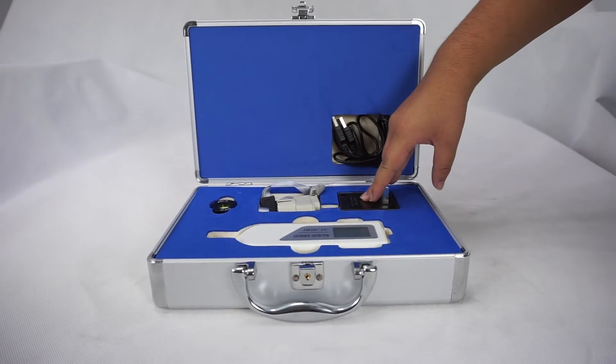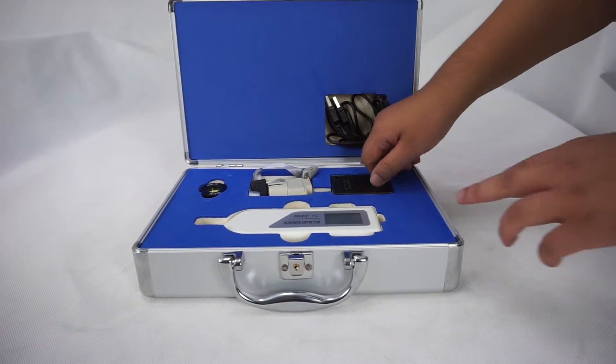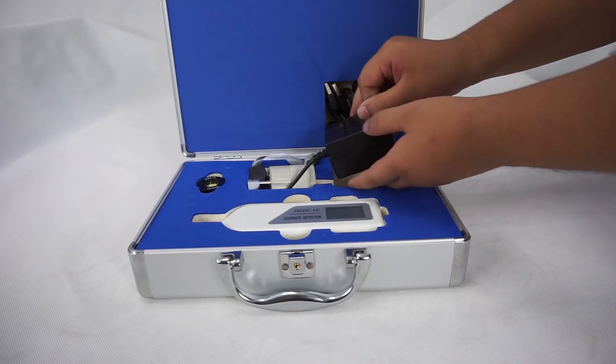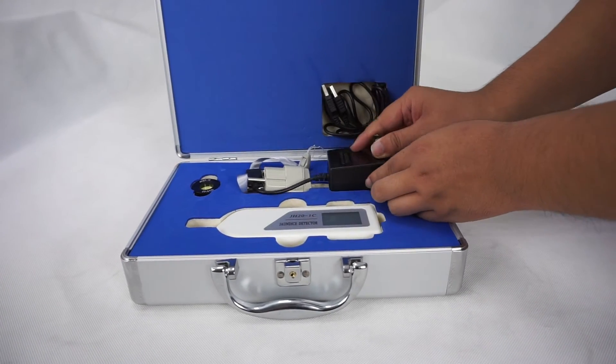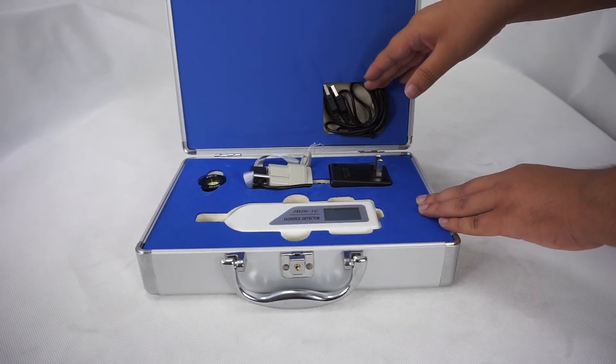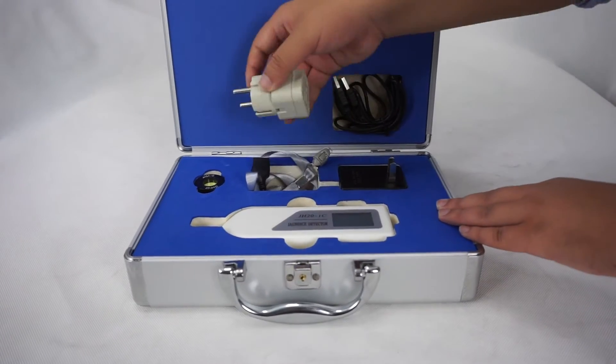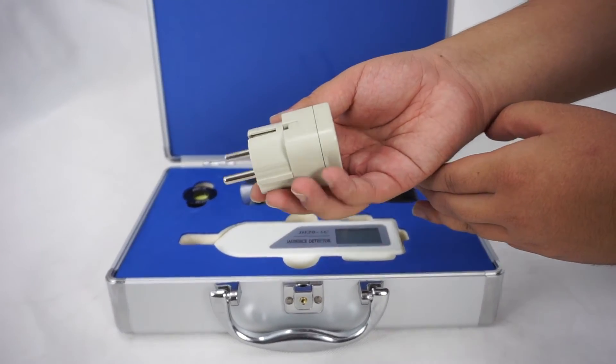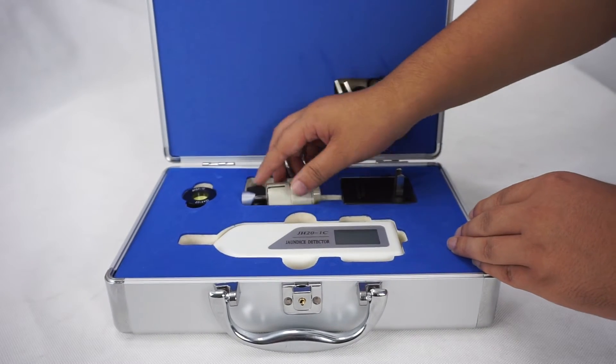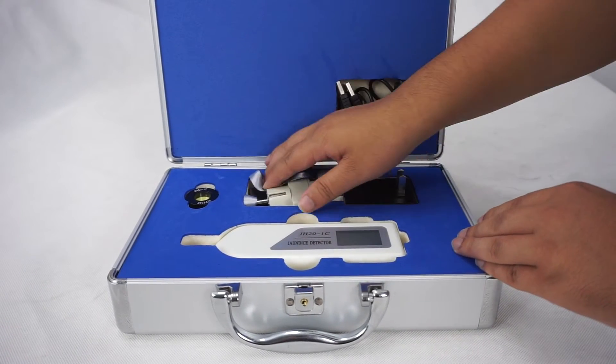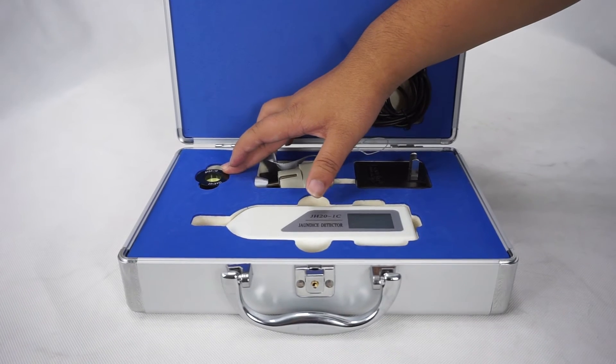This is the power supply, the supply, USB cable, the battery converter, the string, and checker.